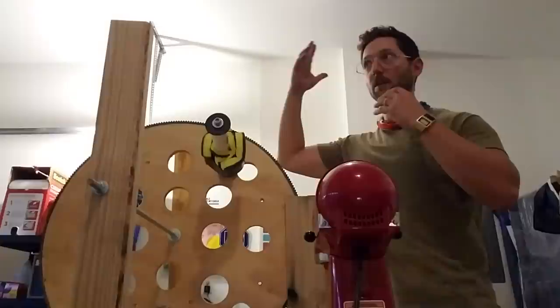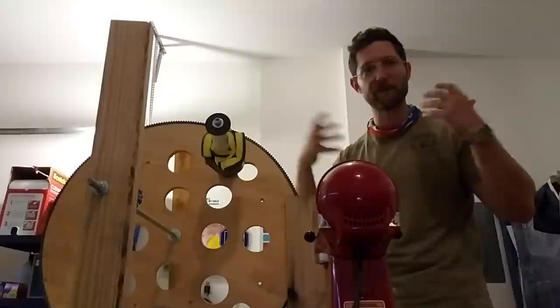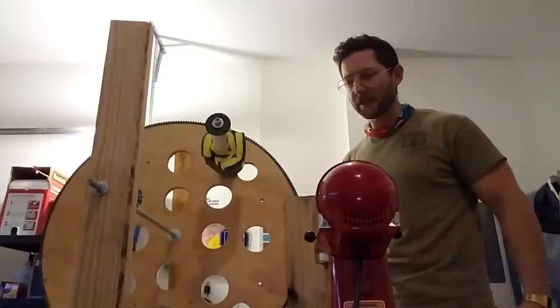Currently, because of our crisis, we are running out of machines and people either don't have a machine, or they have to have a family member or someone bag them. Because ventilators are these big, confusing things that cost tons of money — and they're really not.